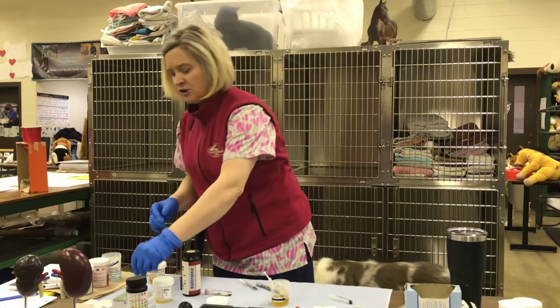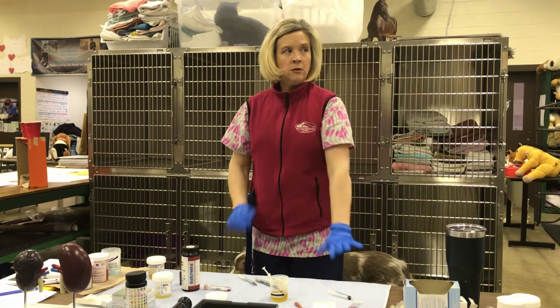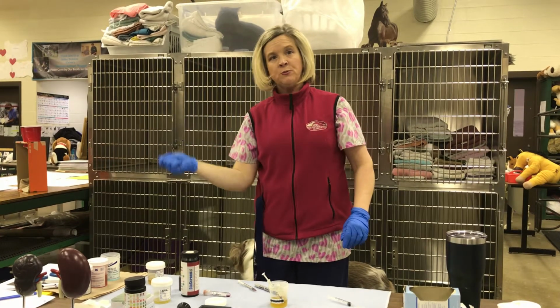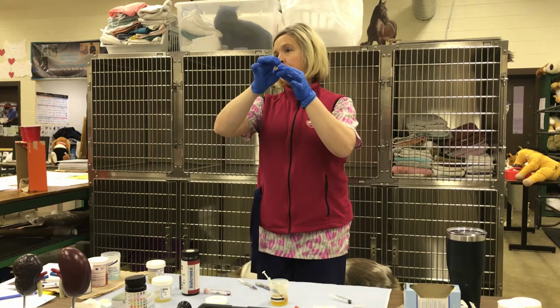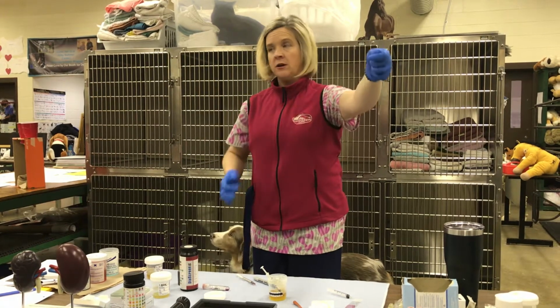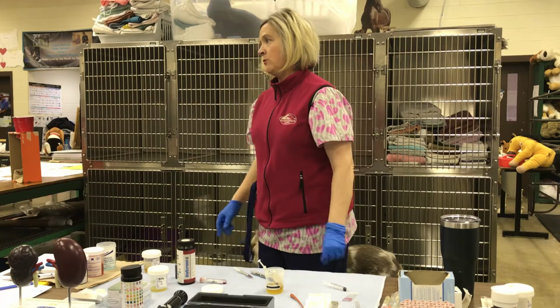Okay, so that is your urine. When we're starting with our visual, our dipstick, specific gravity, centrifuge. Then from there, we're going to pour off our supernatant. So we're going to prepare our sediment. Then we're going to take a sample with unstained with a cover slip, drop of SediStain, cover slip. And we're going to let your technician look at that. And then you've got your urine cytology that we will evaluate.